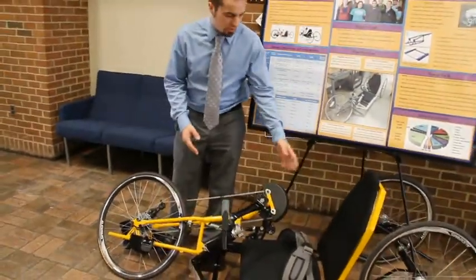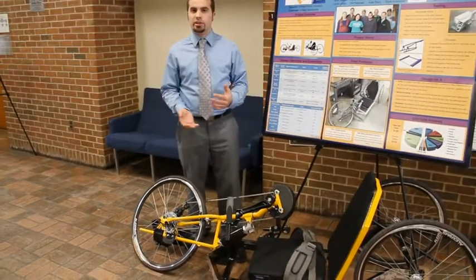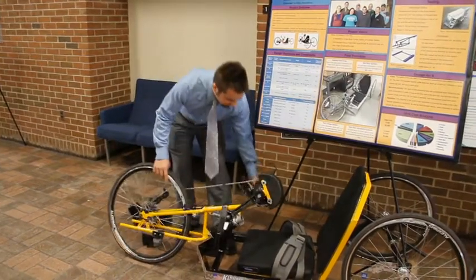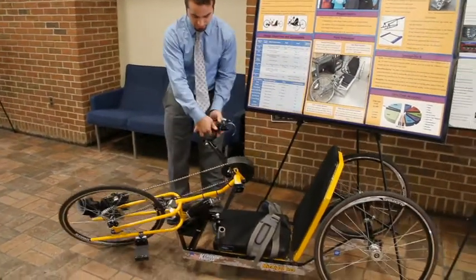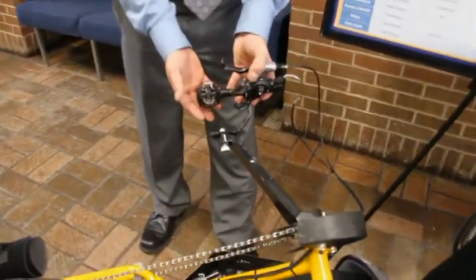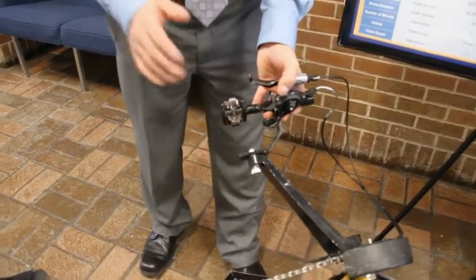For the veterans, they use a lap belt — they can strap themselves in. It's a quick release so they can jump out at any time. We have a white clip system so they can put their hands in if they have any hand disabilities, so they can clip in and clip out really easily.